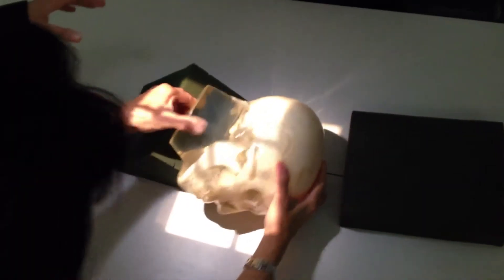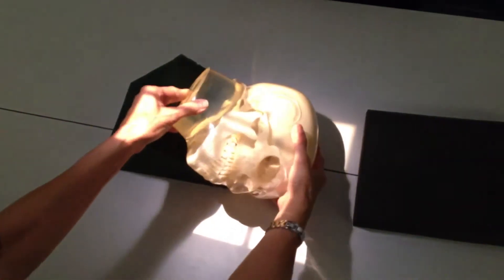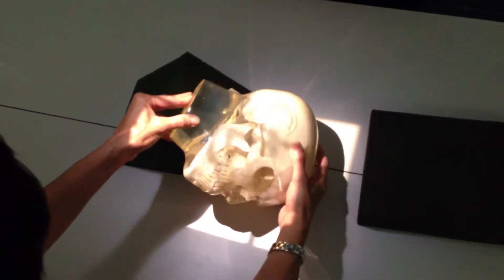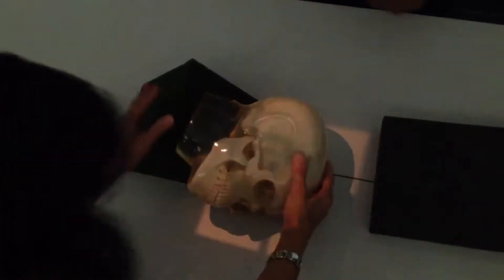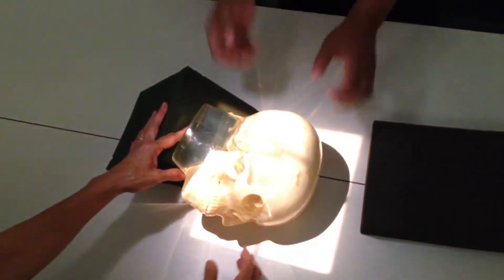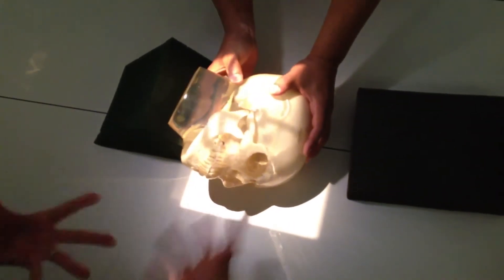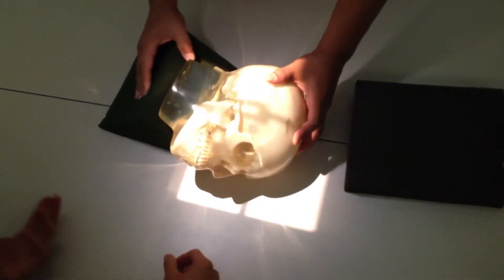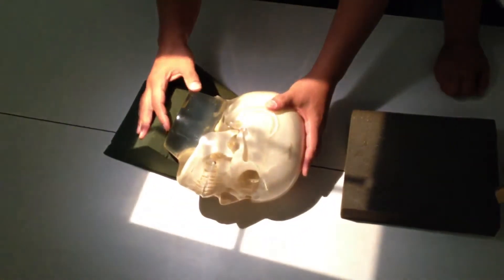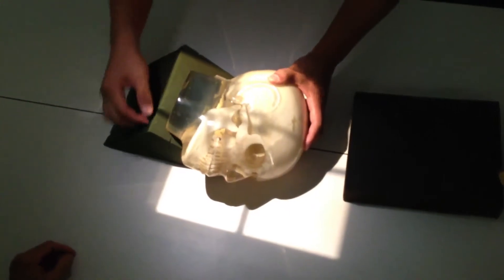Shortening is just rotation — the head's not true lateral, you're distorting the body. Pay attention to shadows; that's where your image is falling. You'll end up with really nice collimation, and you should be collimating. This is not just estimating by looking — that's not it.